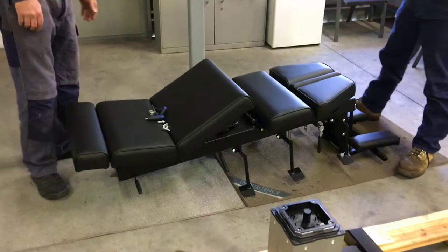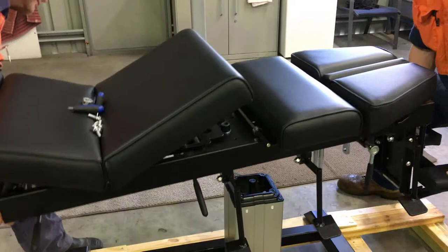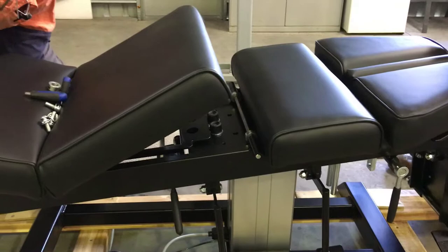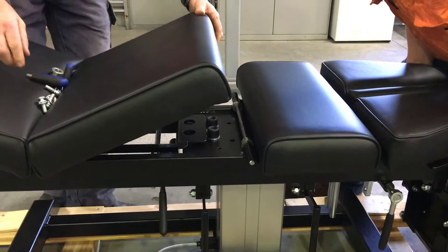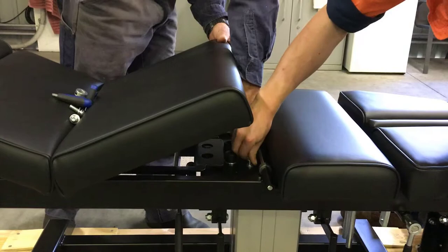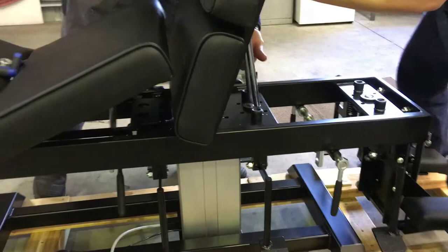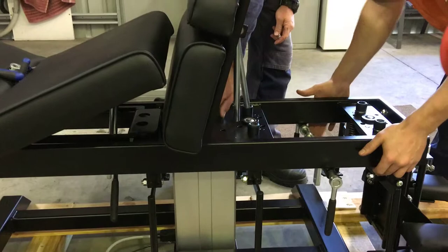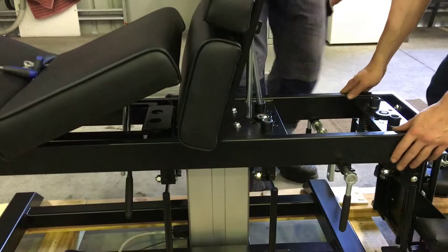You'll have fun if you don't. We're about to lift the top of the table onto the actuator. It's about lining it up and positioning it to make it as easy as possible. Remember, the head of the table is going to be a little heavier than the base. Once you create some counterbalance, put the two nuts in just to finger tightness. Line up the front two — you'll find you can use the same bolts that were in the existing table you removed initially.